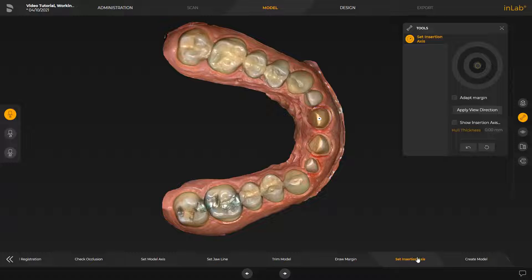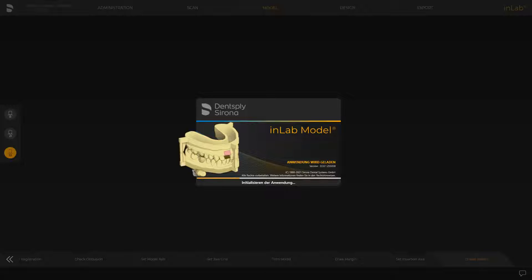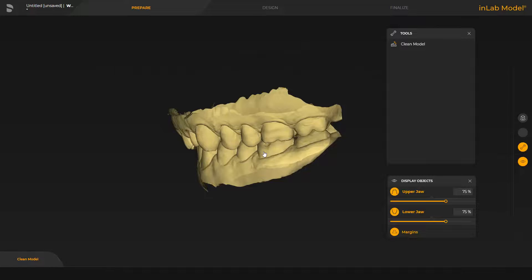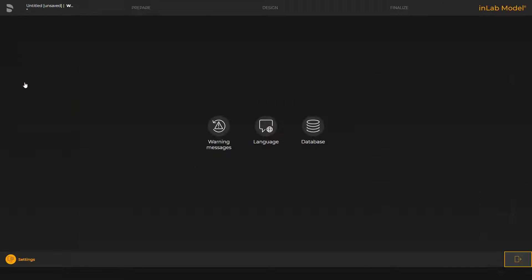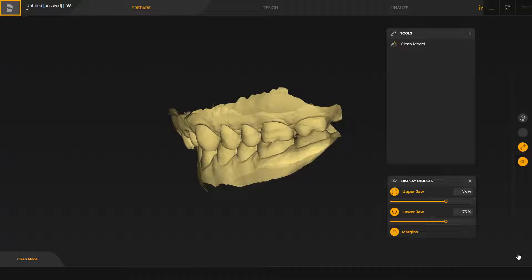To switch to another preparation, you can click on the desired tooth number in the restoration selector. We accept the proposal and proceed with the last step in this phase. We tap Create Model and confirm with Start so that the model data will automatically be opened in the InLab Model App. Before we proceed with the case in the app, we open the system menu, go to the Settings option, and check under Database for the storage location of the case data. Make sure that under Settings, you have defined your preferred storage location for the CAM data, so that at the end, your case data can be seamlessly transmitted to the InLab CAM software. We go back to our case and save it now.